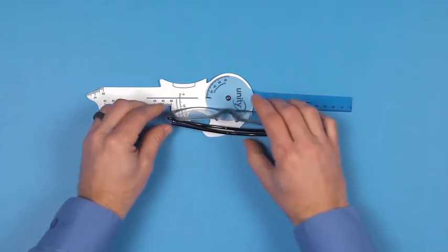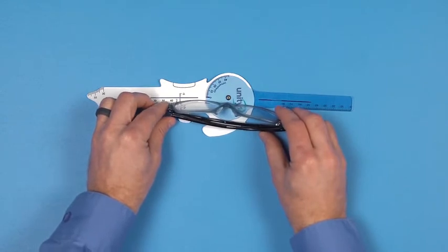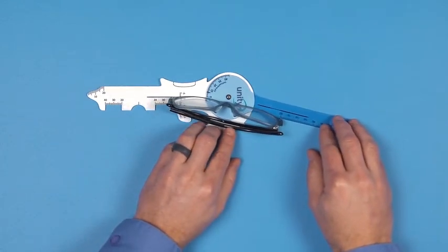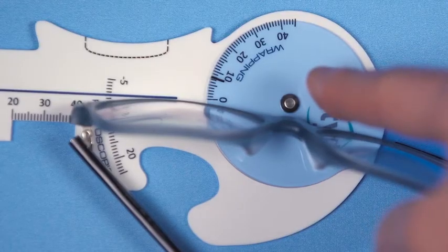So now let's measure wrap. You take the frame and you put the right nasal edge in the middle of the tool, and you're going to adjust the tool on the outside edge of the frame, and that gives you your wrap measurements. It's as easy as that.